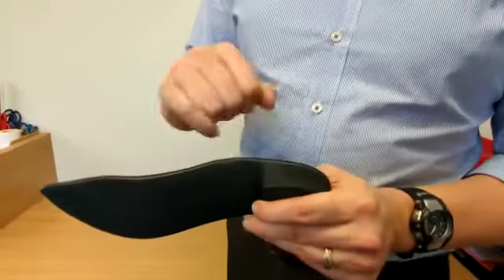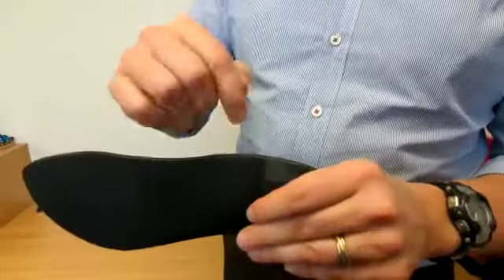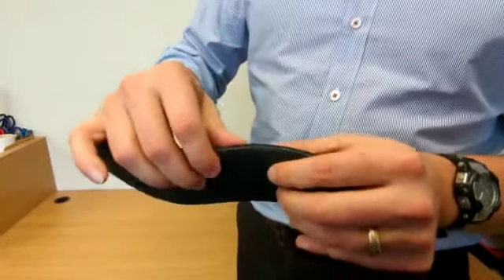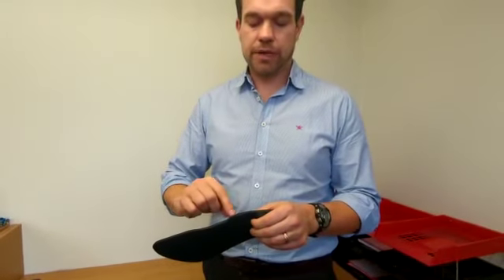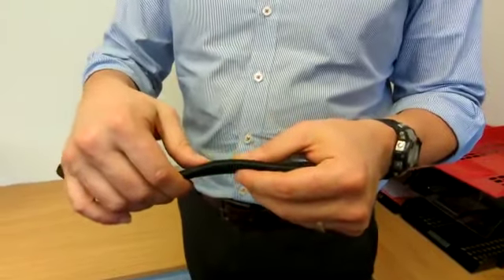For the shell itself, where there's a difference between the block material and the bendy material, you might see cracks appearing, or you might also see whiteness appearing there — like in a safety ruler, if you bend it enough times it gets a bit white. If that starts appearing on your device, it means the shell is no longer doing its job properly.